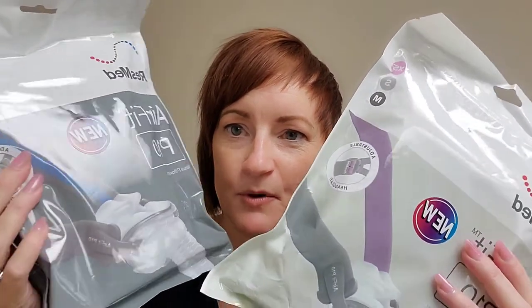They also have a regular version which comes in blue and gray and they've made this new adjustable piece on both of them so they're both marked new again. We're going to open it up and check it out.